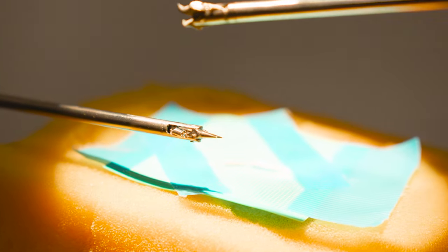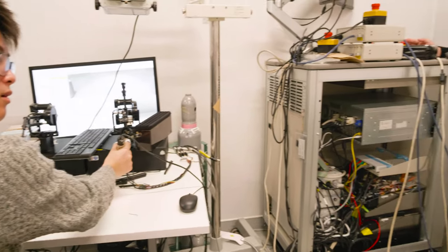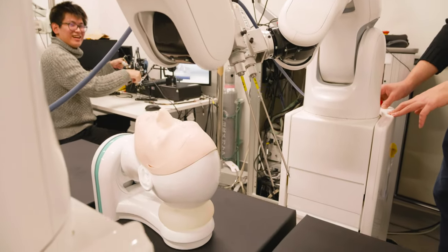I'm studying surgical robots for eye, pediatric, and neurosurgery, and we are studying automation and virtual reality simulators for the robots. Surgeons have defined levels of skills, and we believe that automation of surgical robots can enhance the overall quality of surgery.